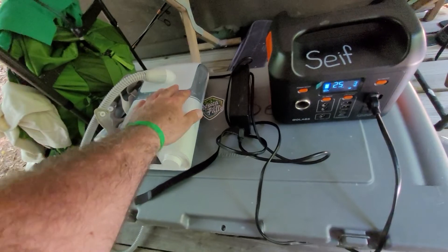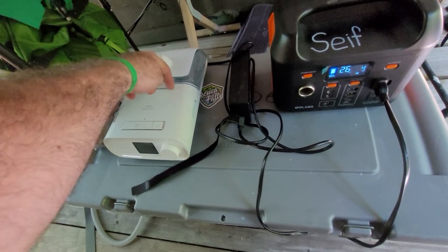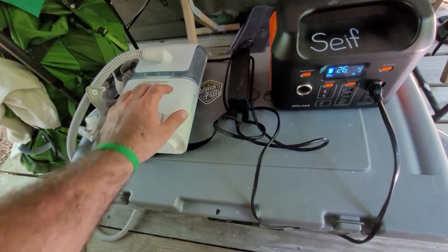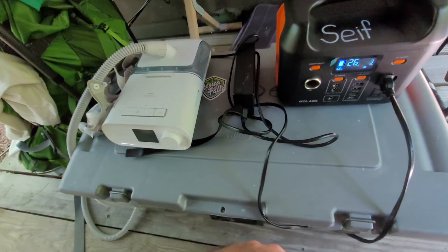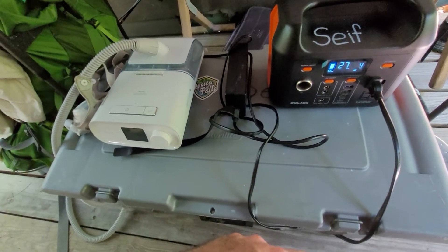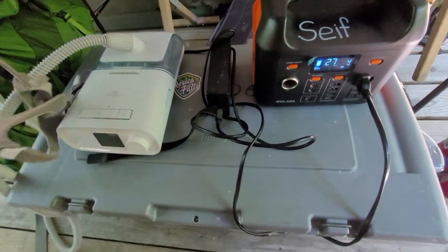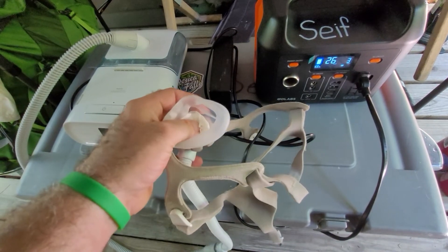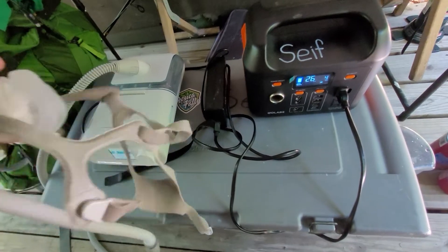You can take this off and just run your DreamStation hooked right at the back of it, but I like to have a little water in there for some moisture, and sometimes I'll turn the moisture on one or two if I'm only staying one night. One tip I have is I stuff my cleaning wipe into this hole here and that keeps bugs from crawling into my unit.